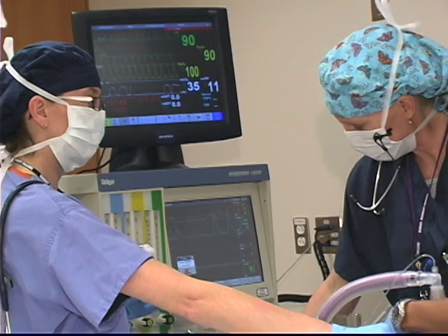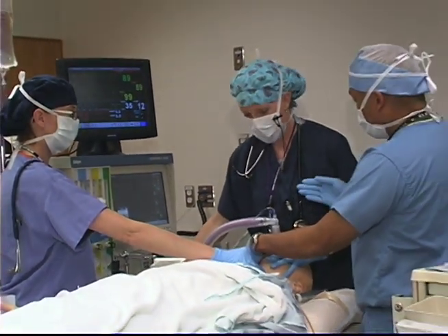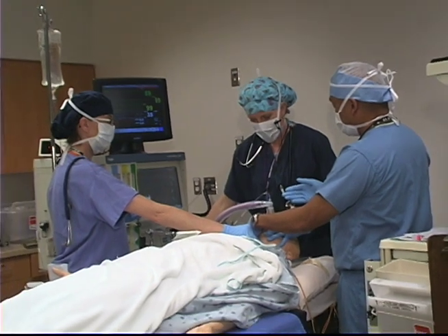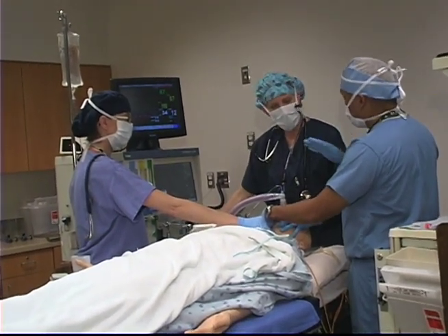Hopefully they will have some idea of what is going on because they have the data being presented to them. We are presenting them with the data they would see in real life — what is on the monitor, what the patient is exhibiting. They know a lot about the context. They are given the opportunity to take that, process the information, make an assessment, go through a clinical decision-making process, and implement a decision.